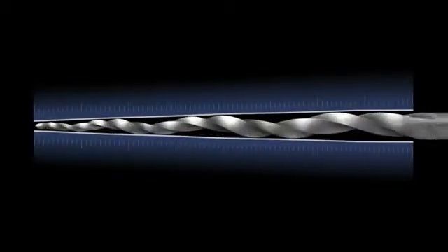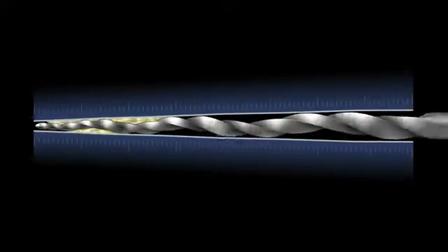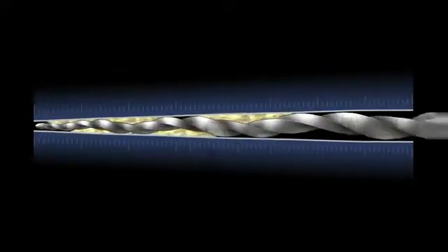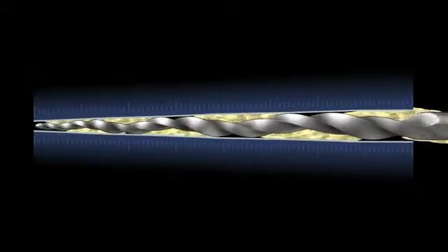Take a look at this instrument's offset design in a simulated canal. Notice the available space for collecting and augering debris out of the canal.